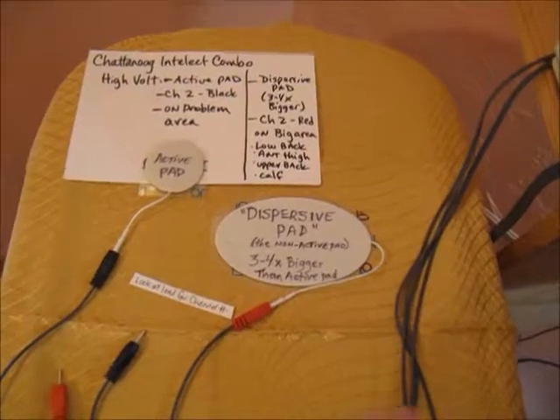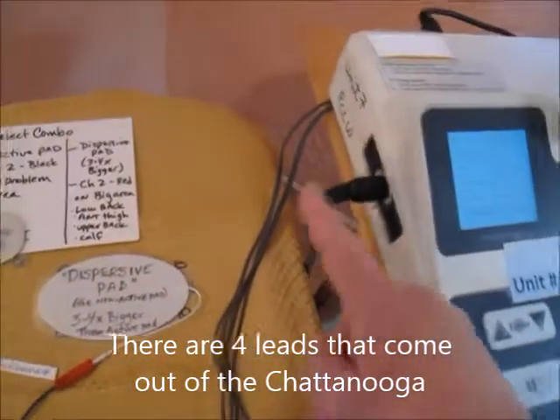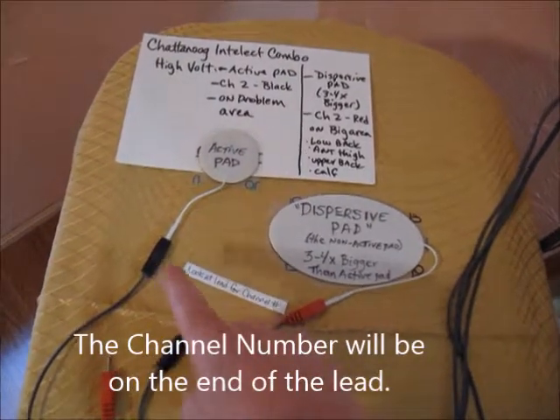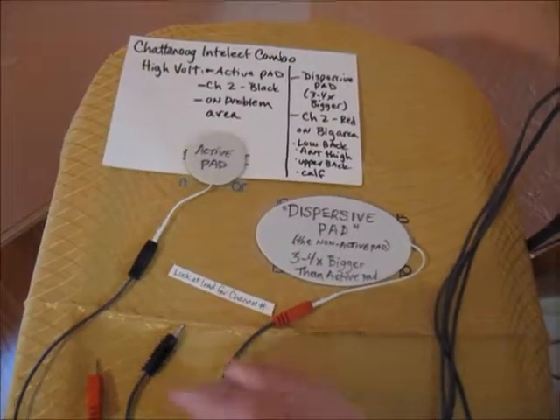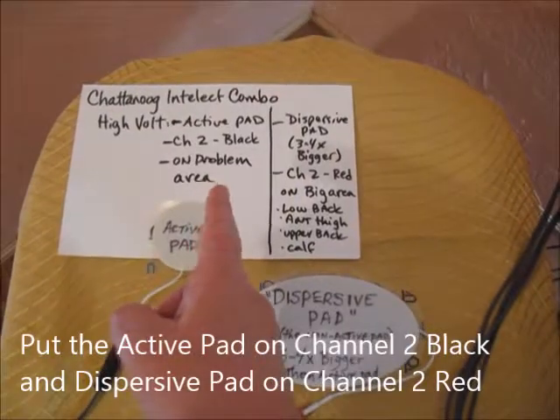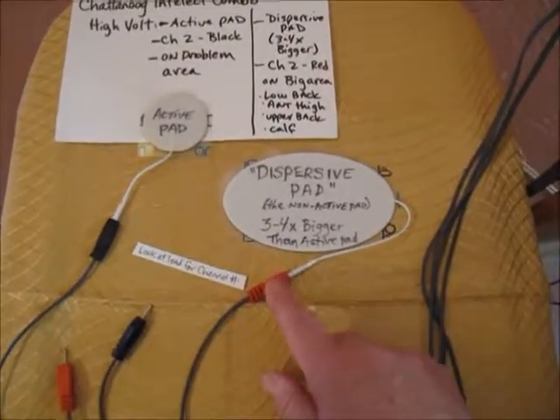So what I've done right here, I'm not actually setting it up on a human, but I wanted to show you there are 4 leads that come out of the Chattanooga, and they're labeled with a teeny little number either right on the black or red part or on the little white part right by the lead. This one here says channel 2 and it is black. This says channel 2 and it is red. With HiVolt, the active pad will be on channel 2 black, the dispersive pad will be on channel 2 red.